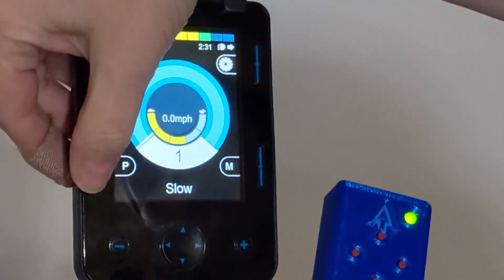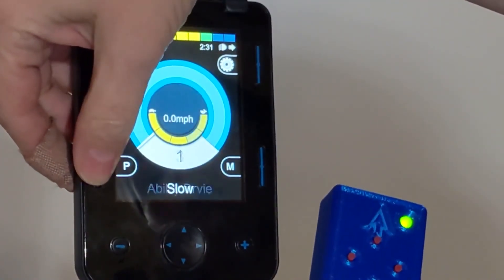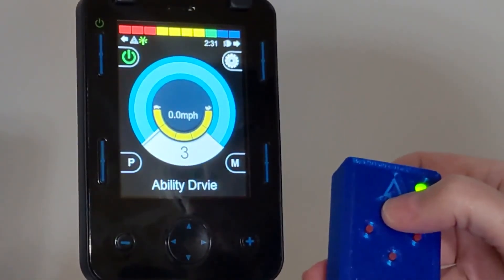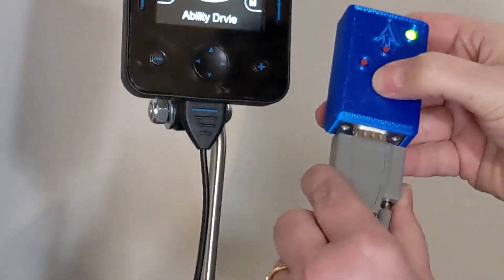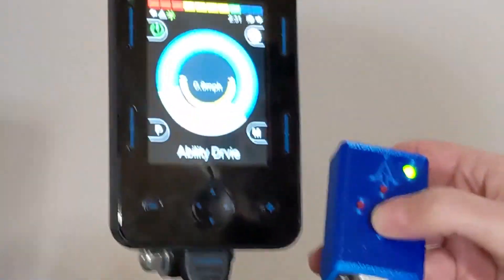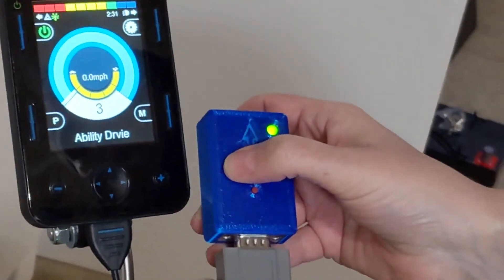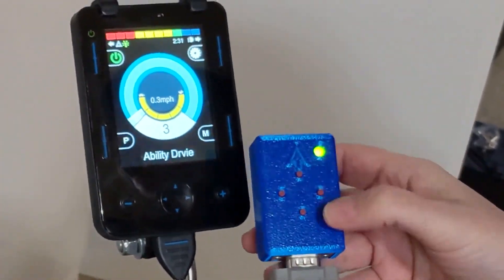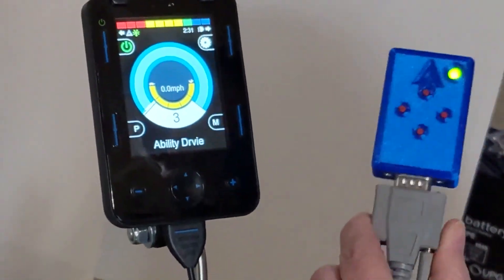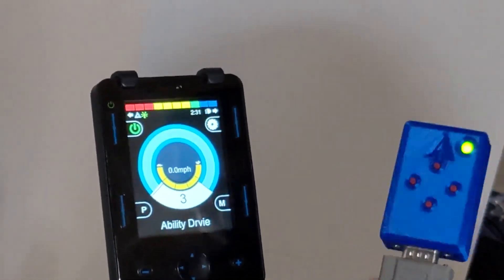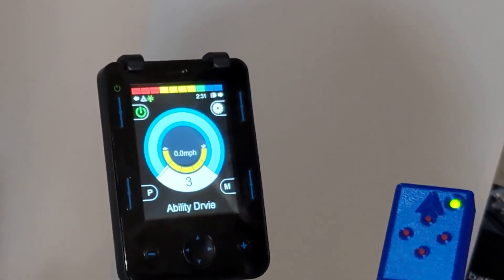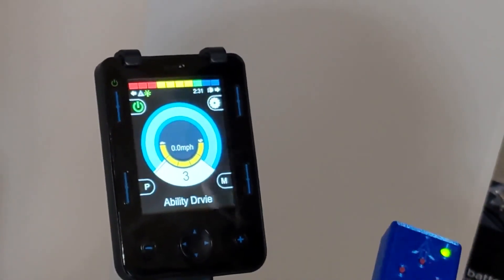Oh, we've got to go into Profile 3. Forward, backward, side, and side. And that way you can check and make sure you're all configured correctly.